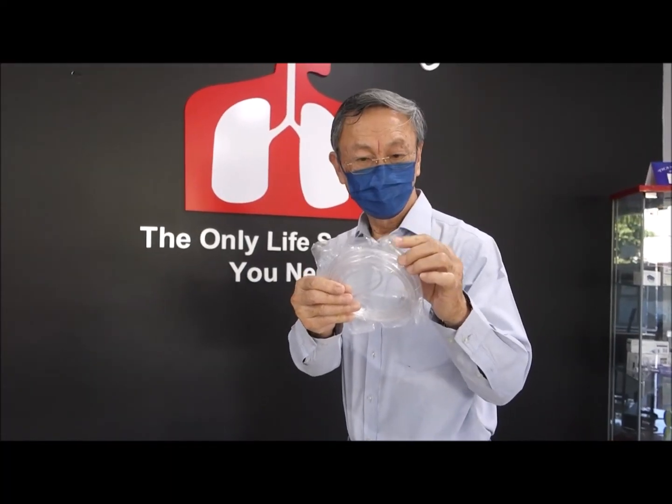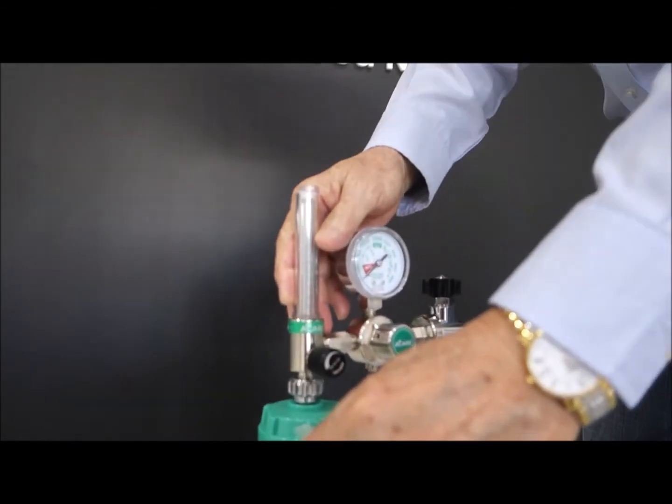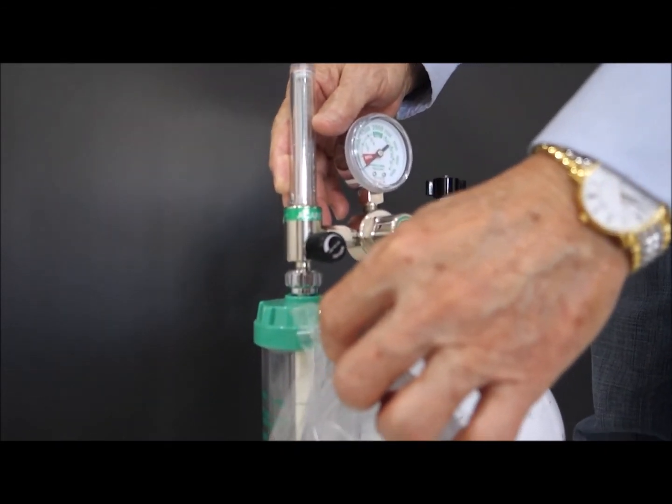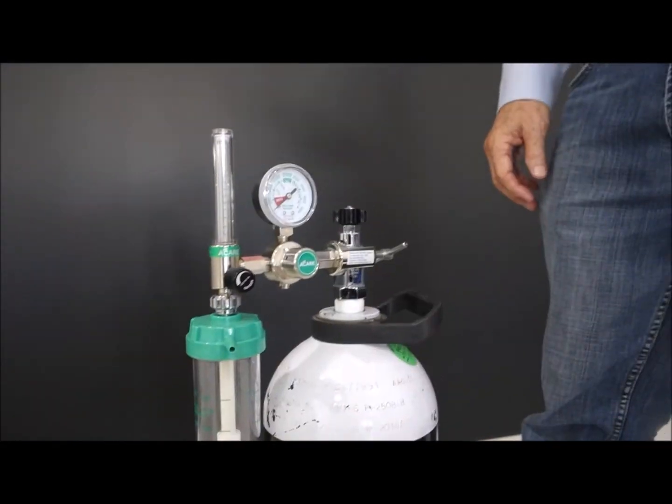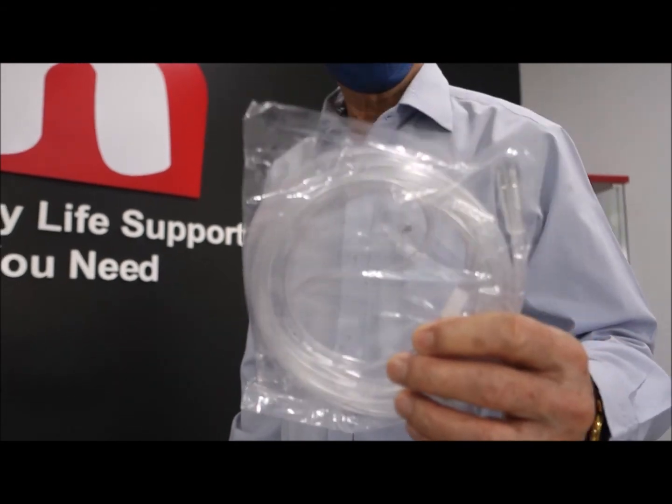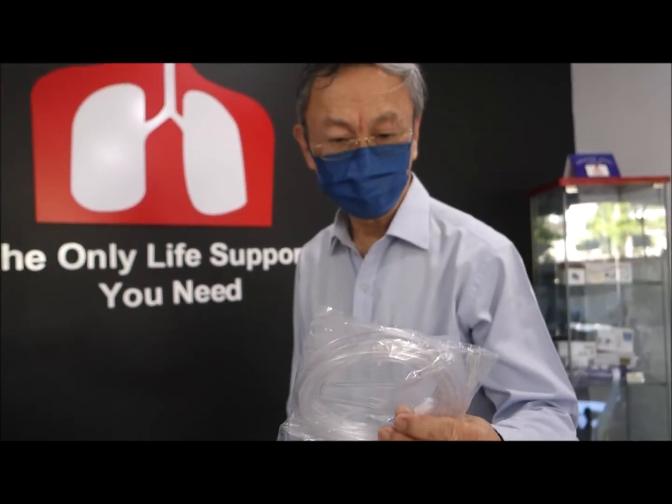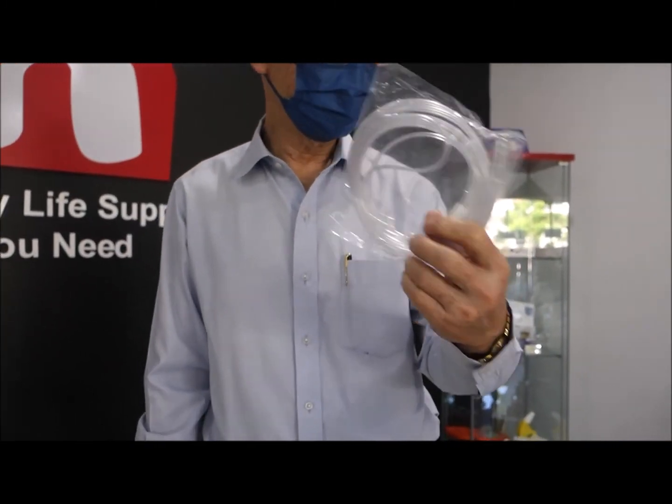The tubing connection here can fix to, that should fit to this outlet here and to this nozzle here. And this is a disposable product, so you may buy this, you can order this from a company. Ideally change this probably once a month or so for hygiene purposes.